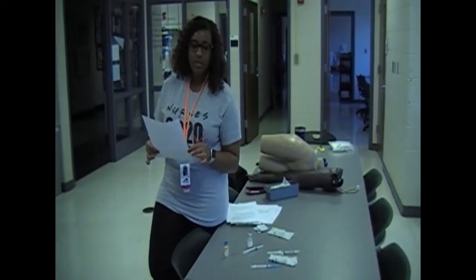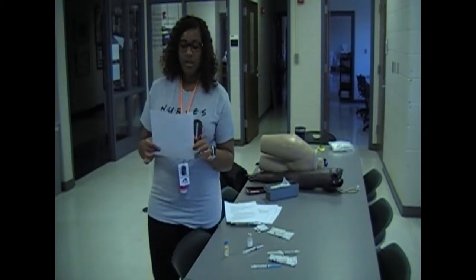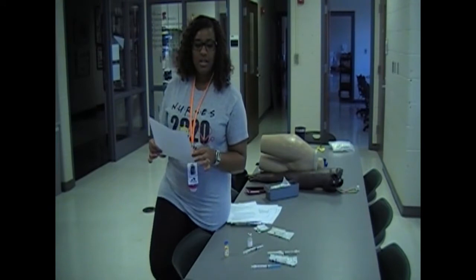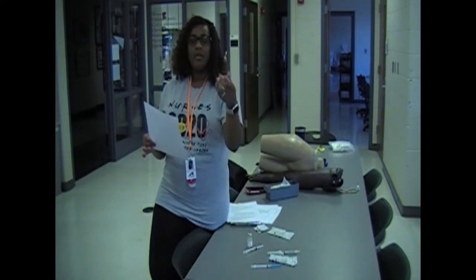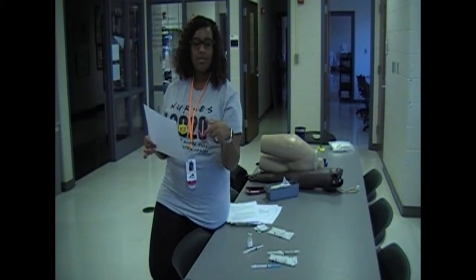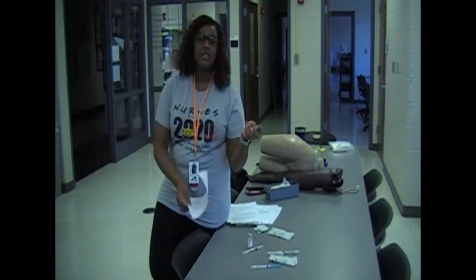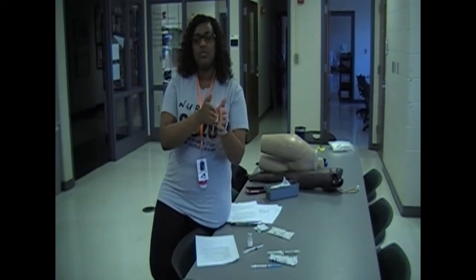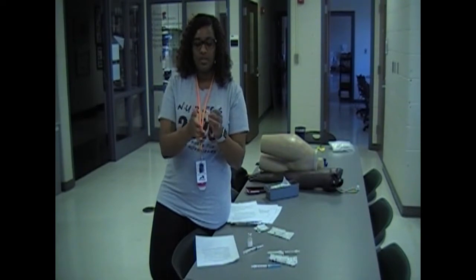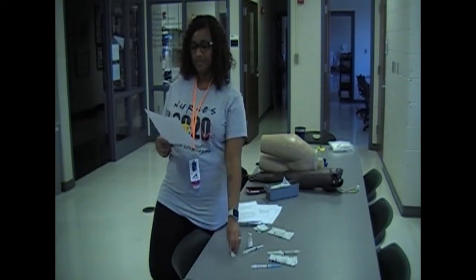So the first one we're going to do is your injection medication preparation. In your needle bags, you will receive a Practi powder. You can just pop your top, fill one of your syringes up with water, then mix it together. Make sure when you're reconstituting any medication, you just roll it till all the powder is dissolved, and that's what you will use to draw up all of your meds.